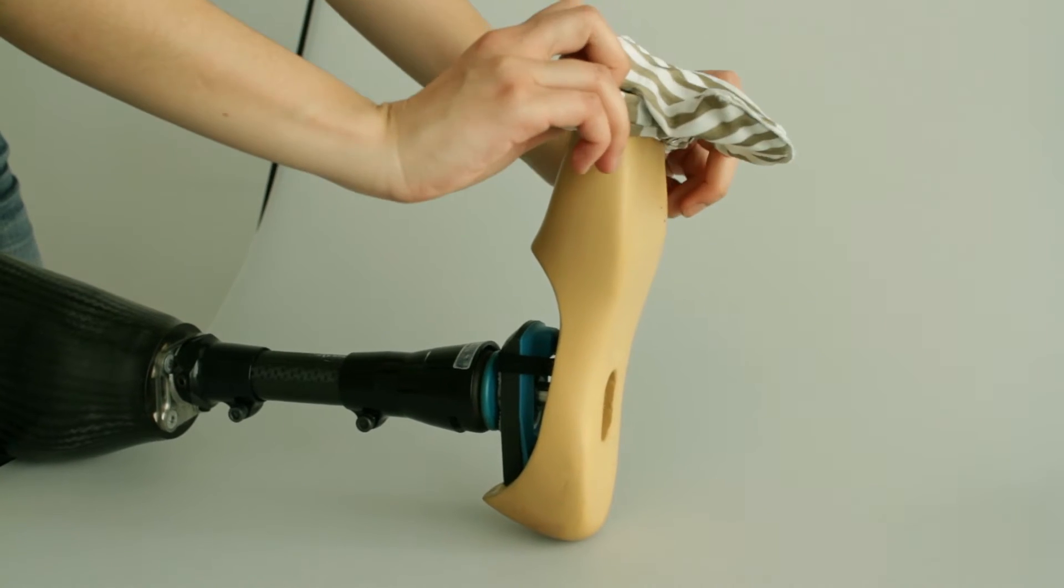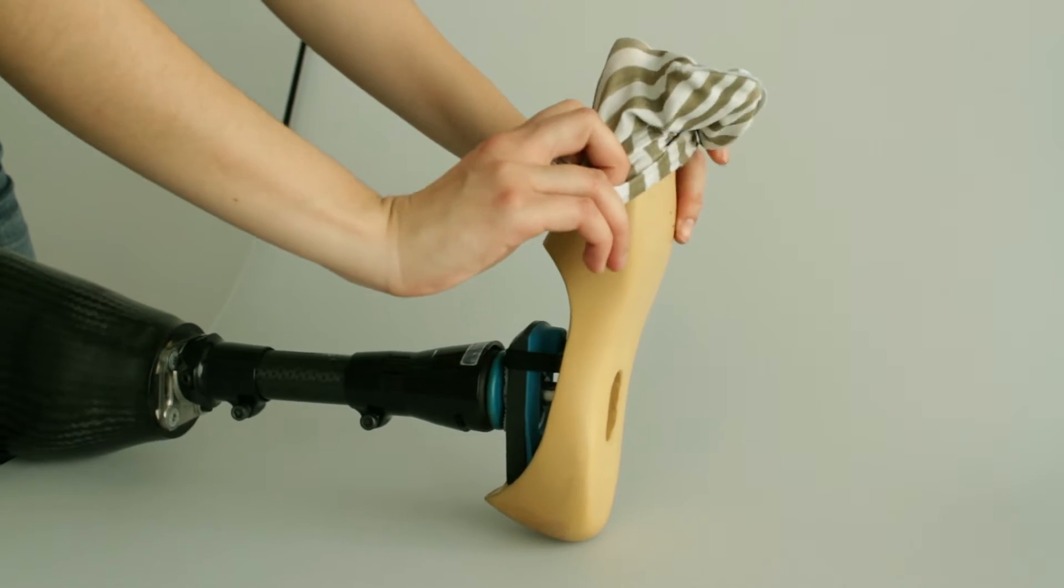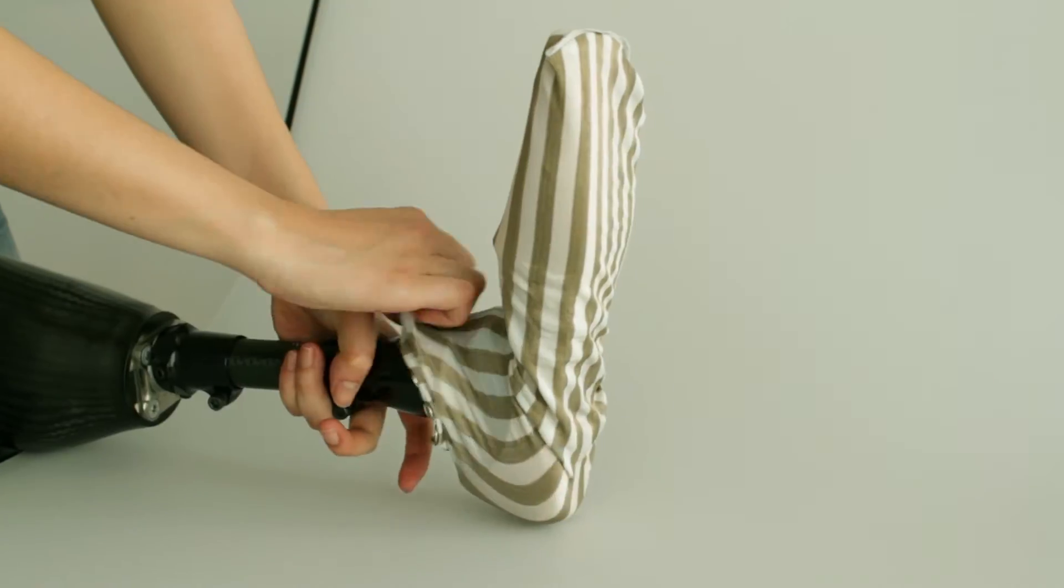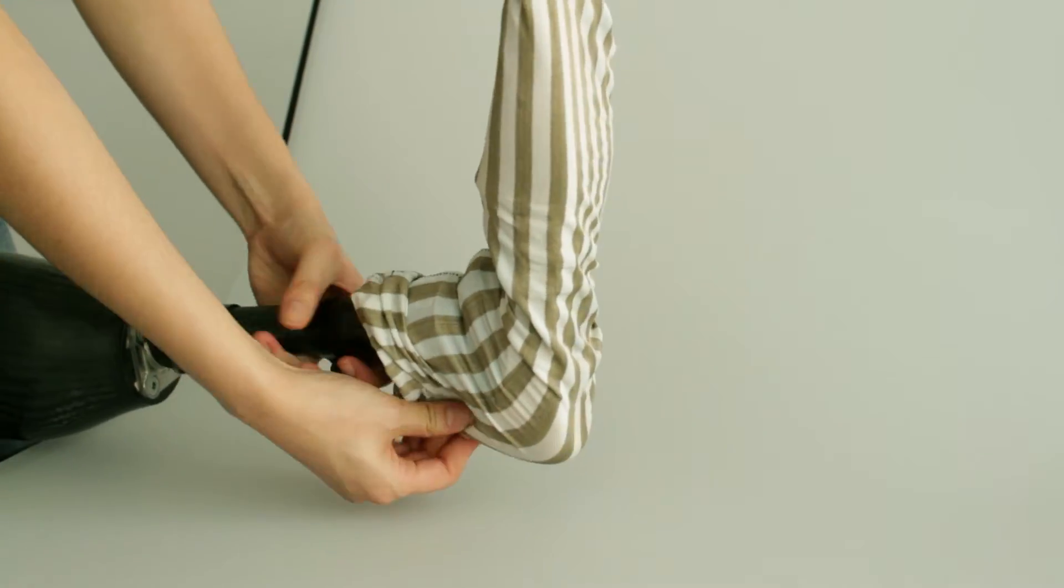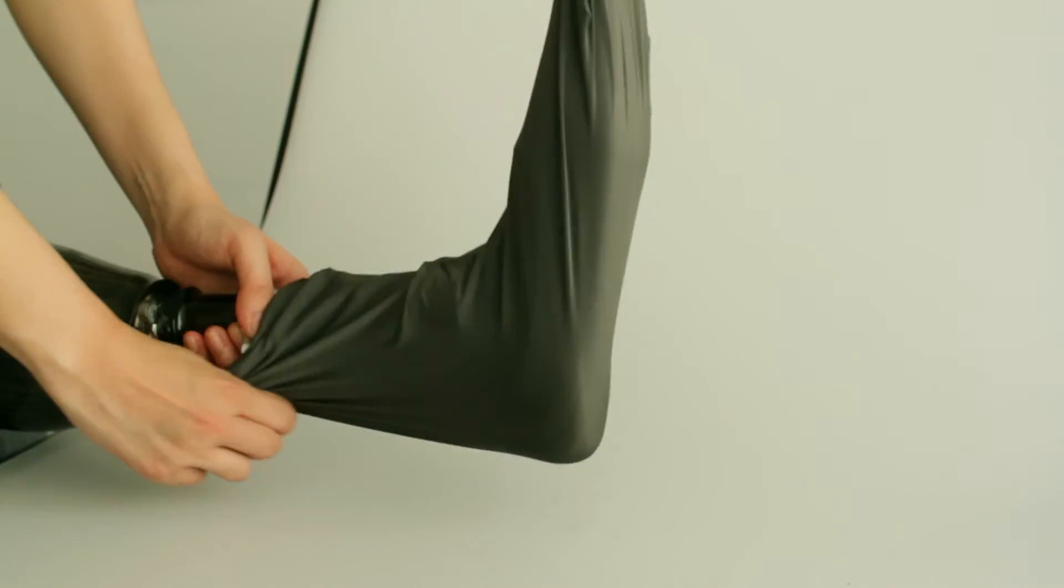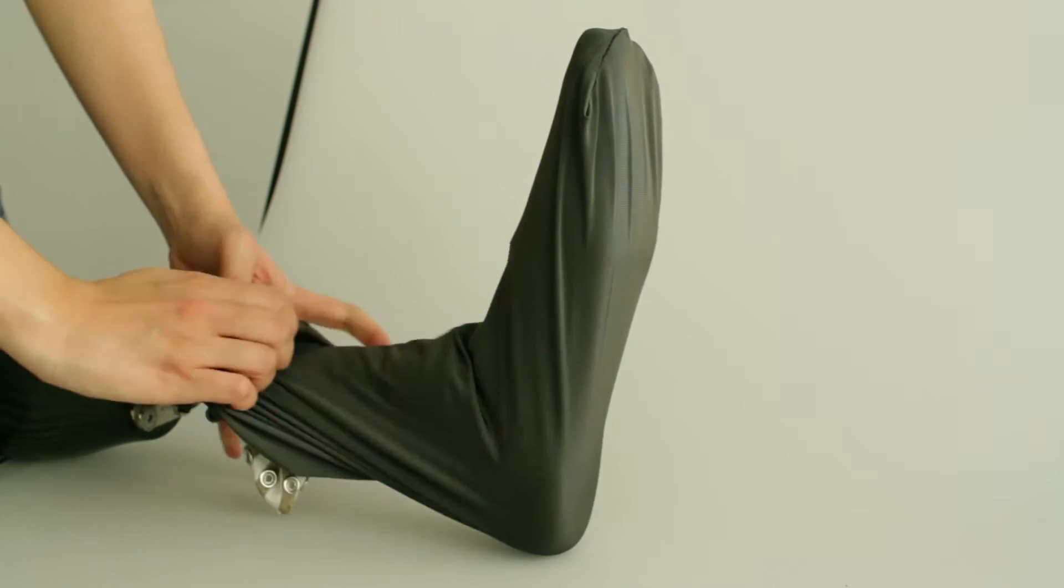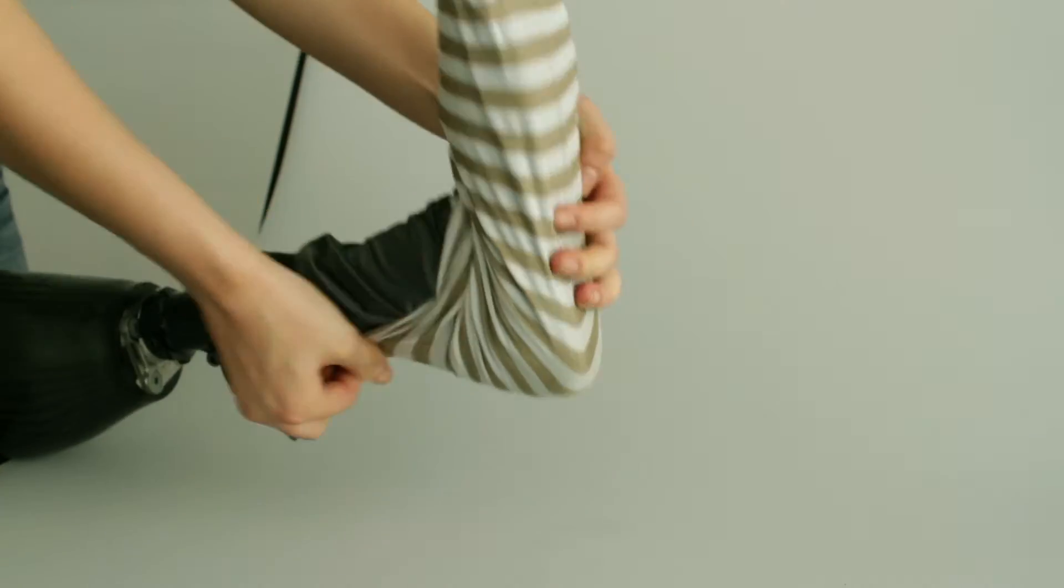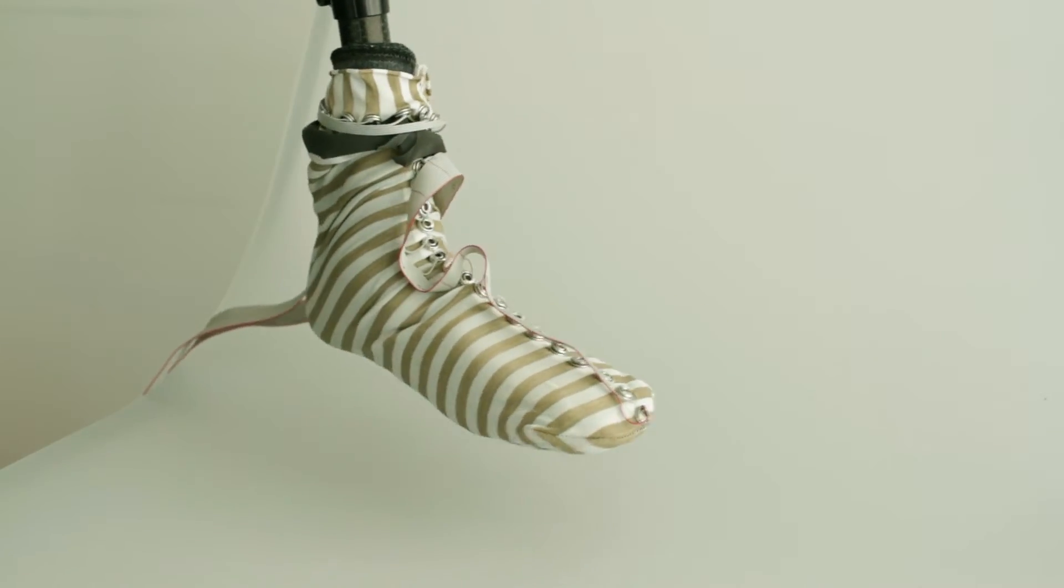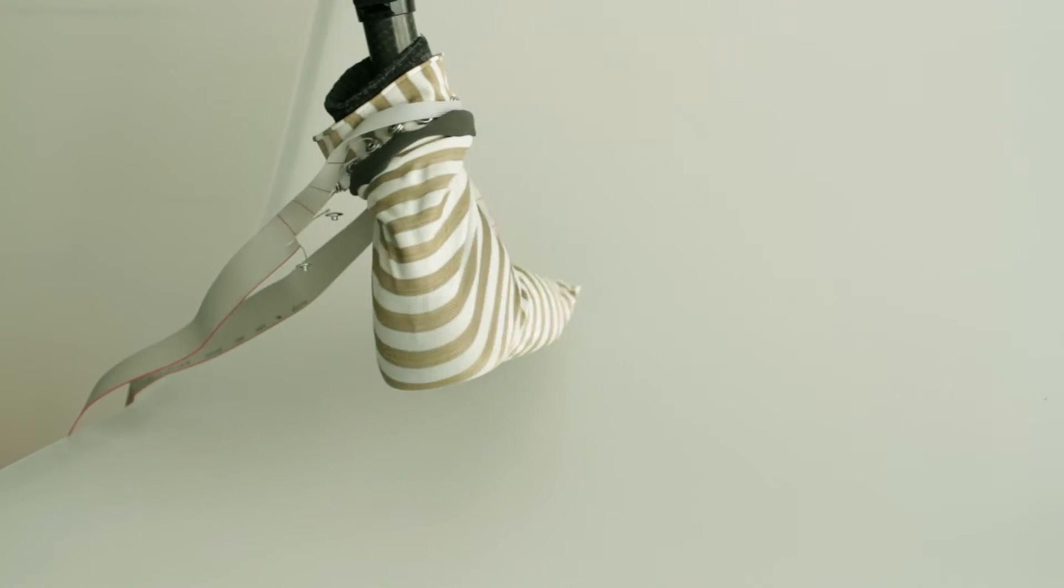ProCover uses a three-layer textile composition. Two layers of conductive zebra fabric sandwiching a layer of piezo-resistive fabric creates a pressure-sensing matrix that envelops the entire foot.